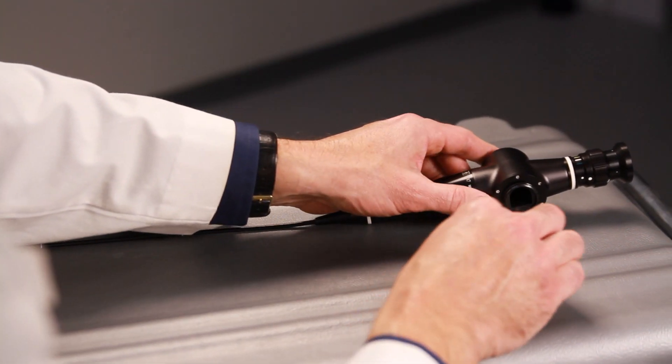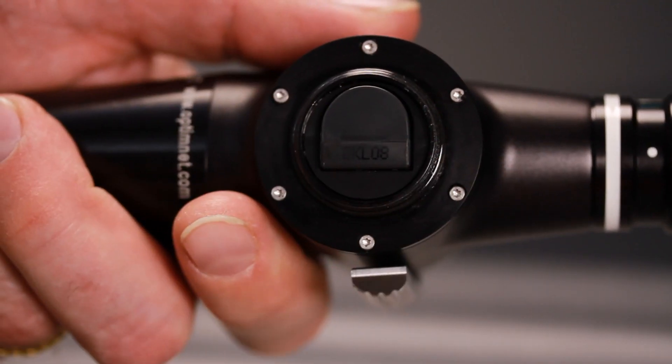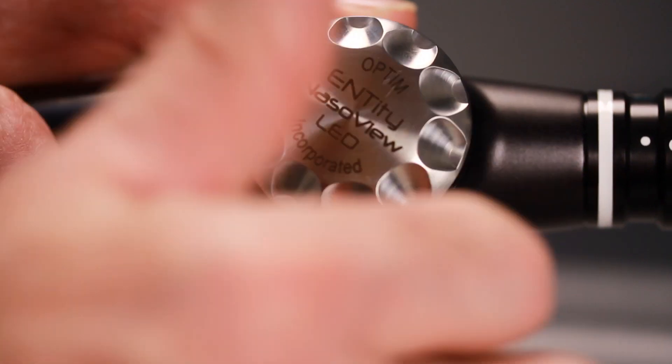It's quick to assemble and easy to use, and its single rechargeable battery makes this device truly cordless.